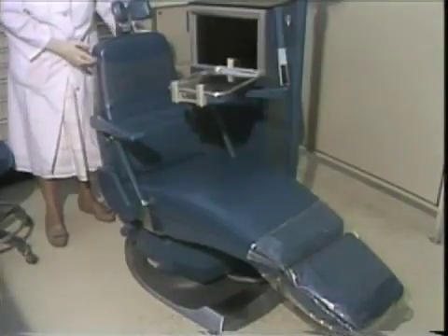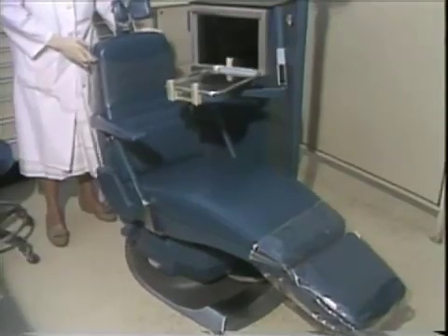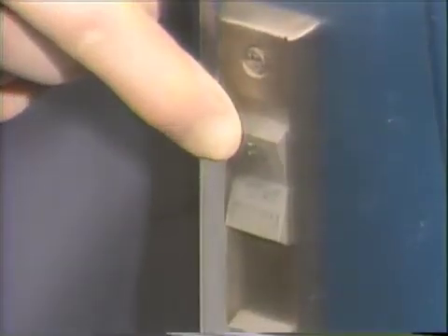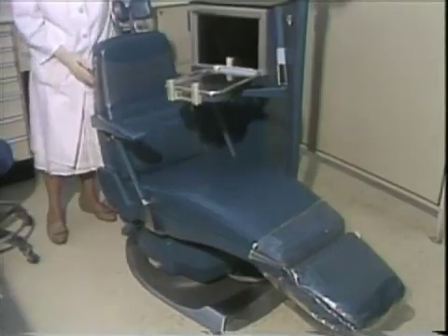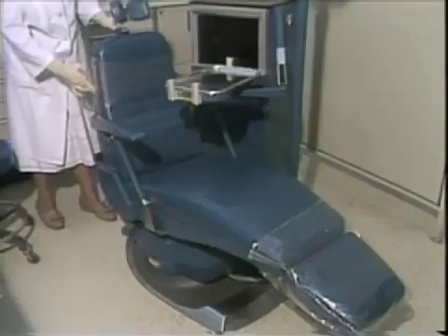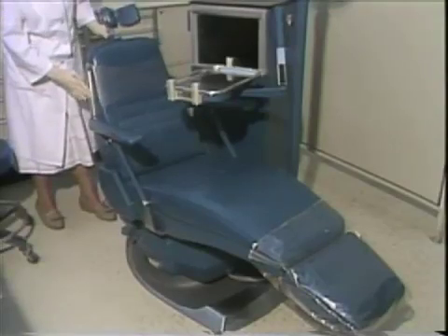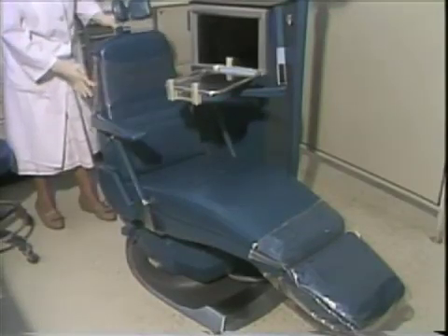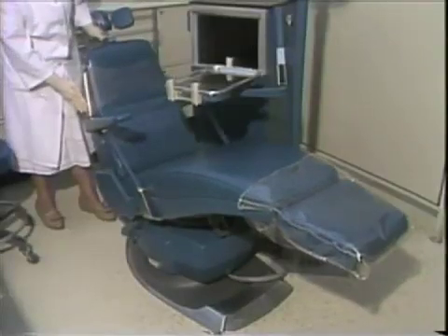The dental chair works on an air glide mechanism. You may initiate it by pushing in on the round switch. If you hear a rush of air, it is working properly. Switches for adjusting the chair include: the top switch raises and lowers the chair, the middle switch lowers and raises only the back of the chair, and the lower switch tilts the entire chair. The chair should be maximally tilted when performing most dental procedures.